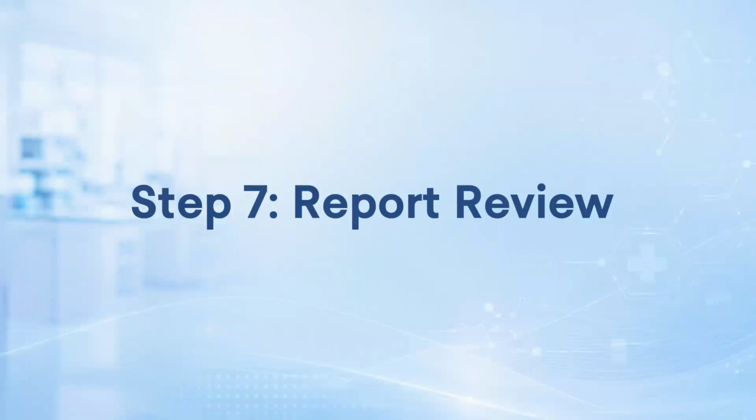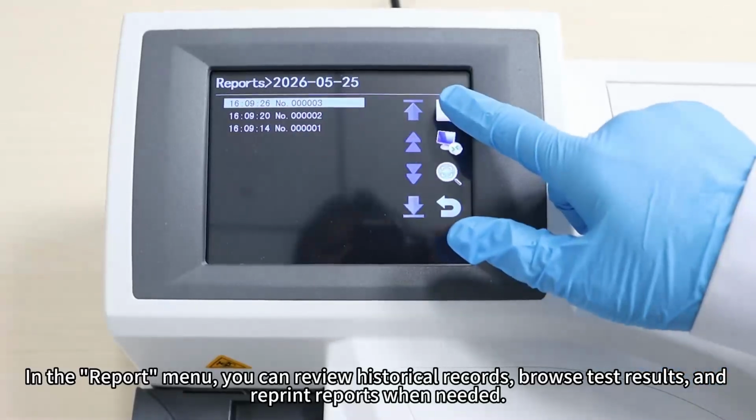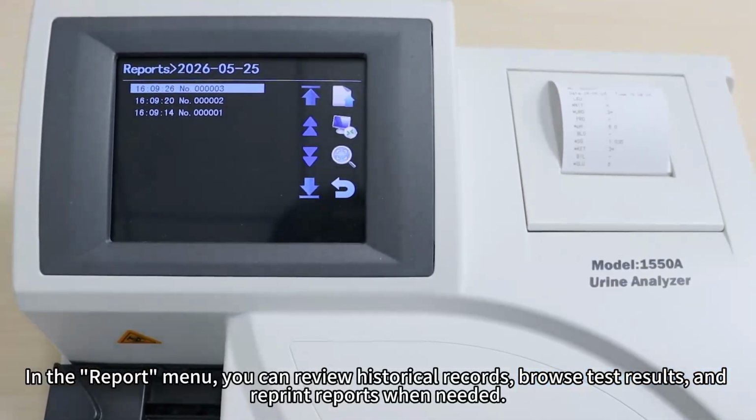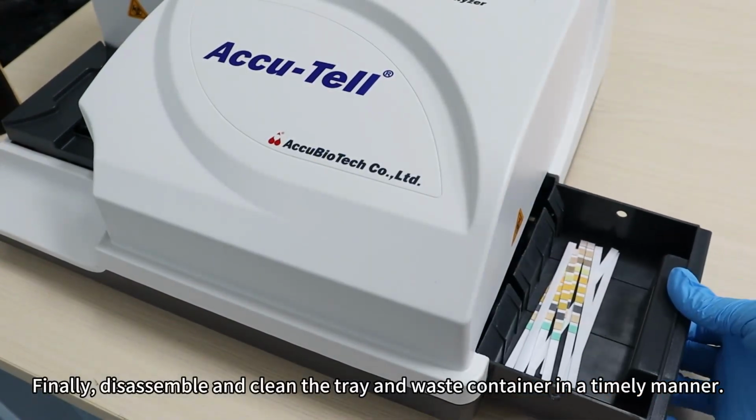Step 7. Report Review. In the Report menu, you can review historical records, browse test results, and reprint reports when needed. Finally, disassemble and clean the tray and waste container in a timely manner.